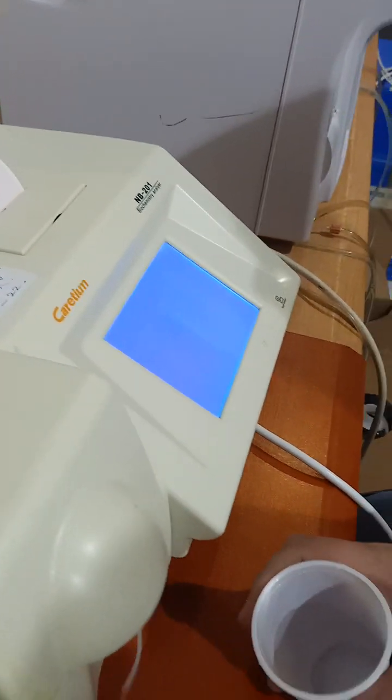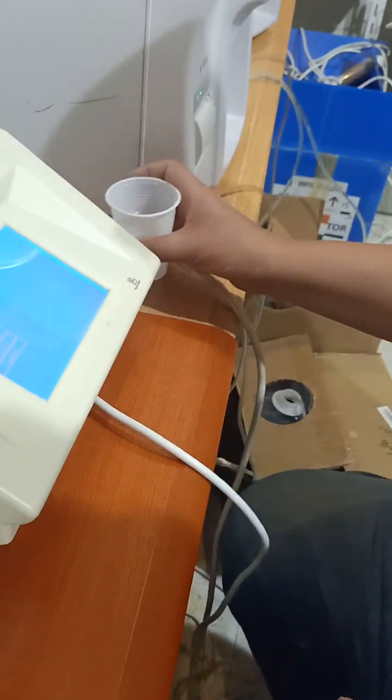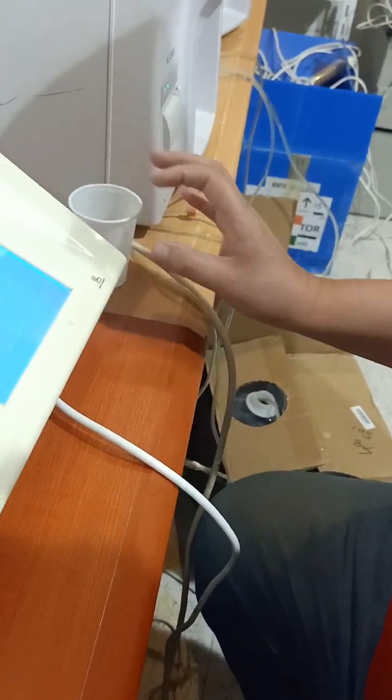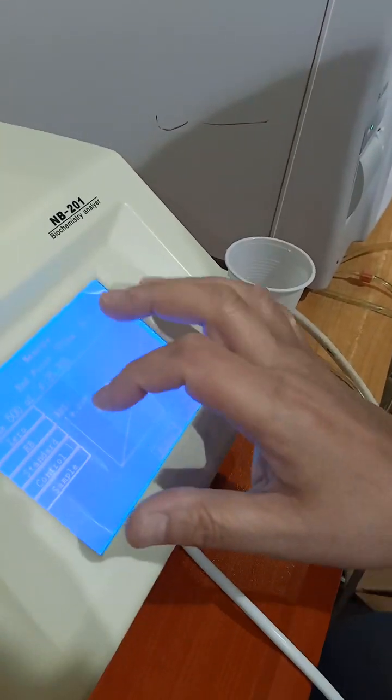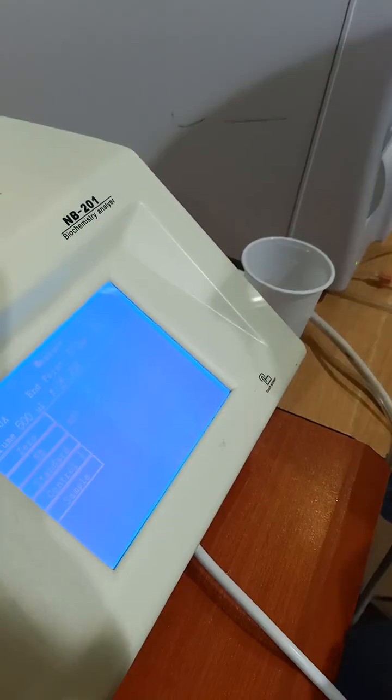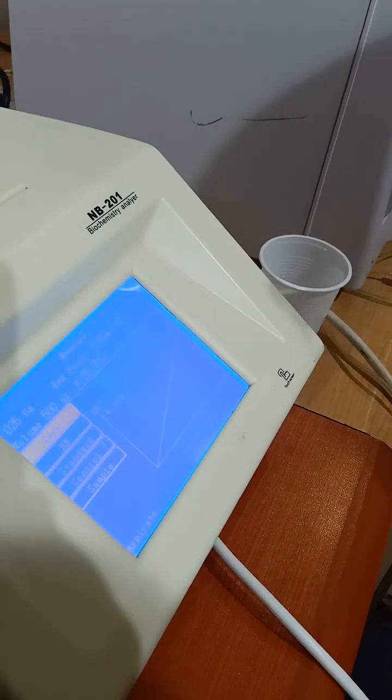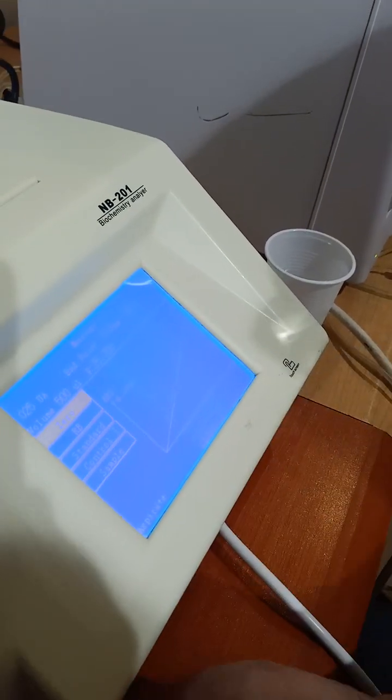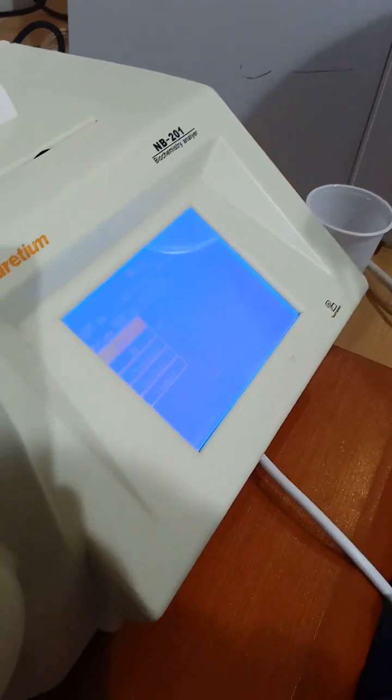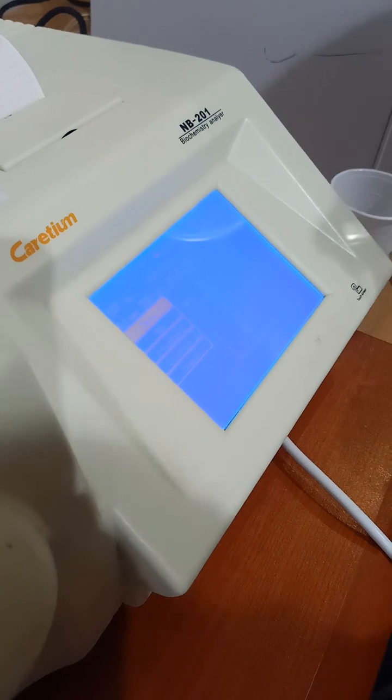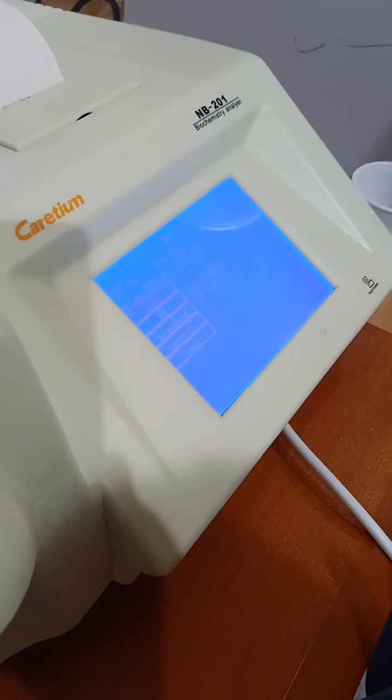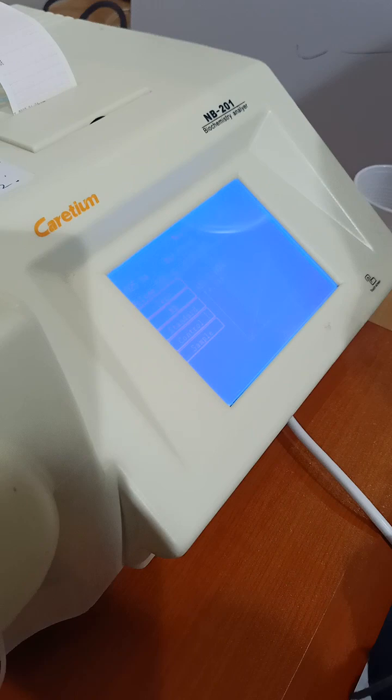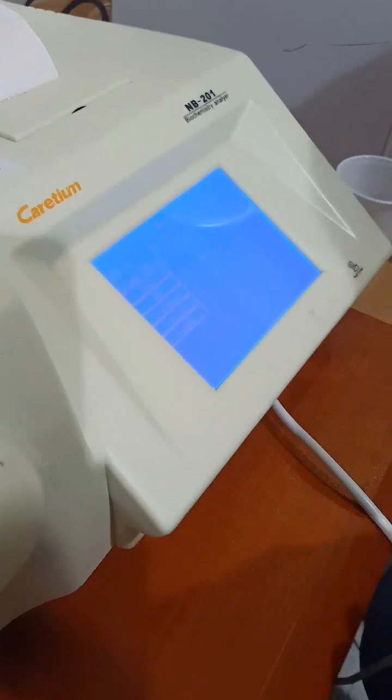Second step. We'll make zero. Here. And second step. We'll put our blank. Here. This is the blank.